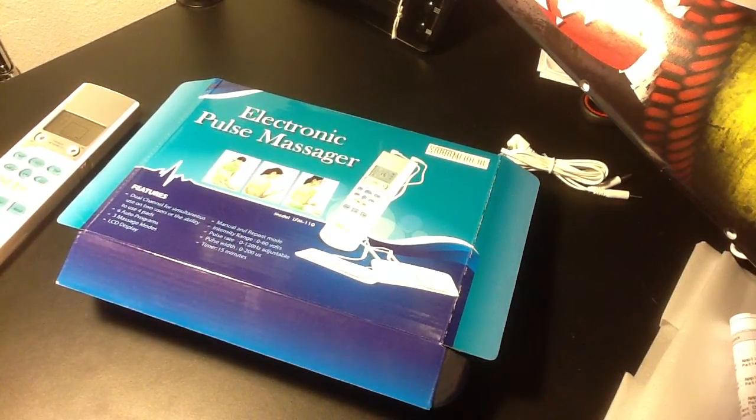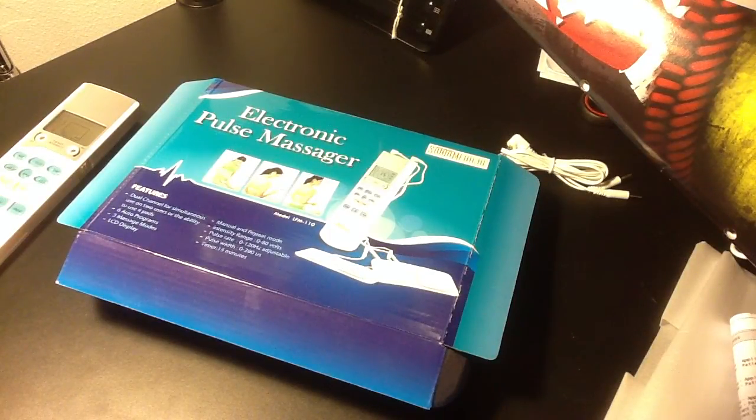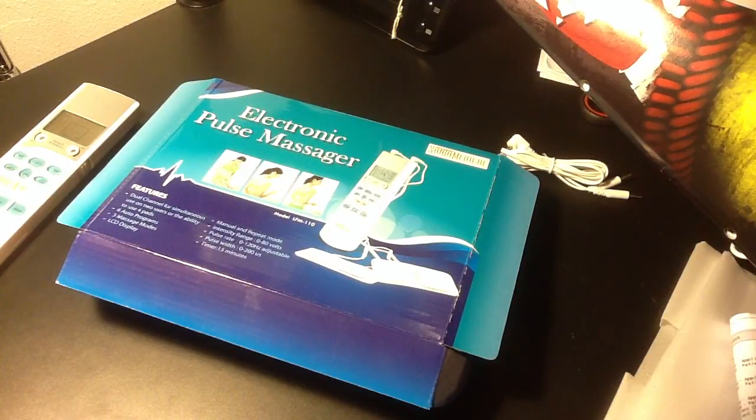This is a review of the Santa Medical TENS unit, the LFM110 electronic pulse massager. This was purchased on Amazon.com for about $35.